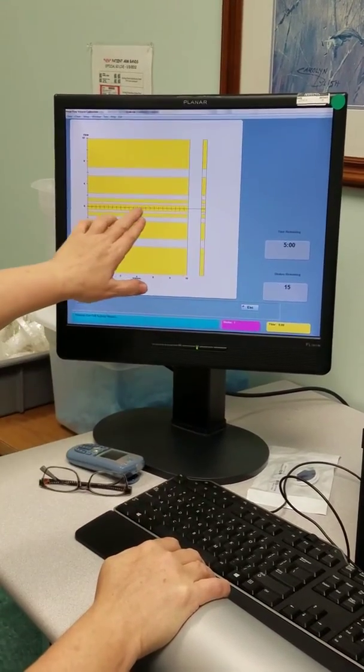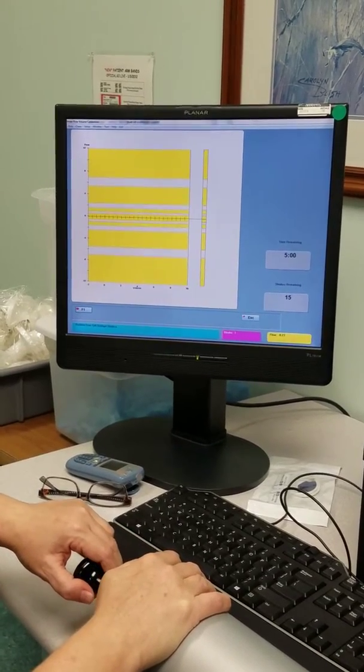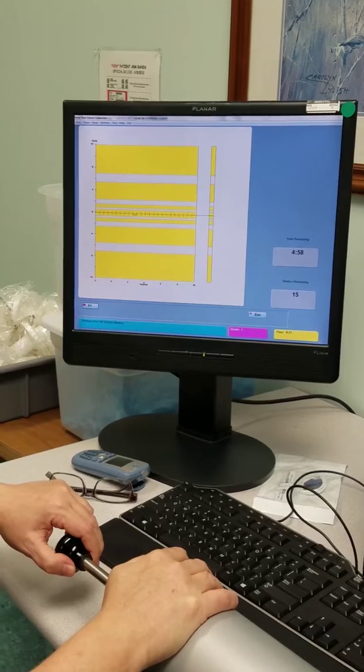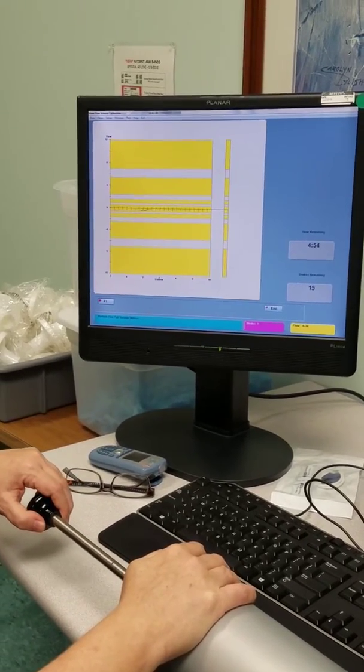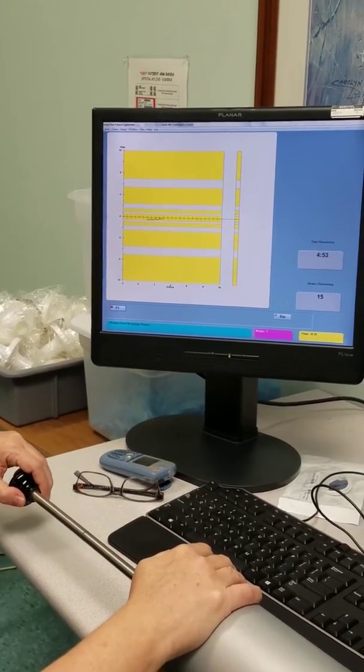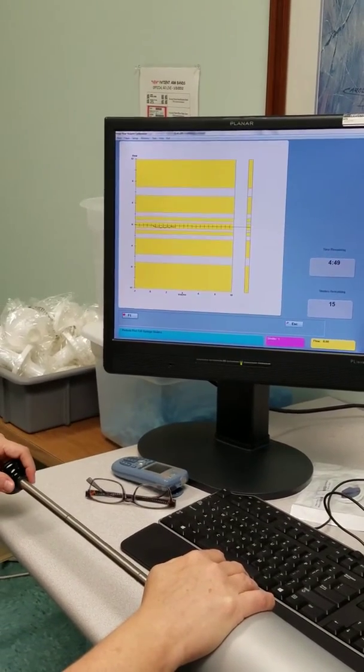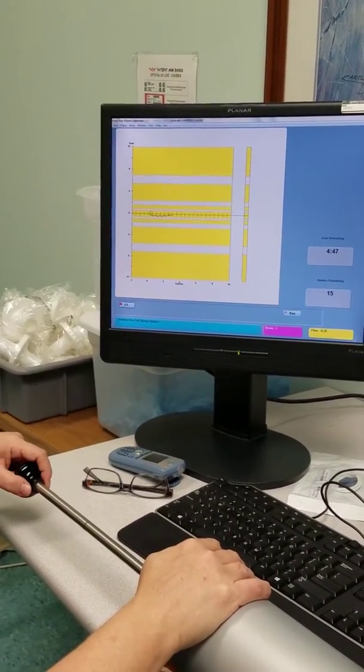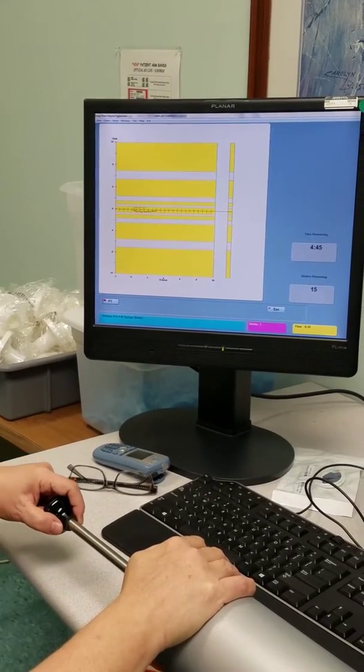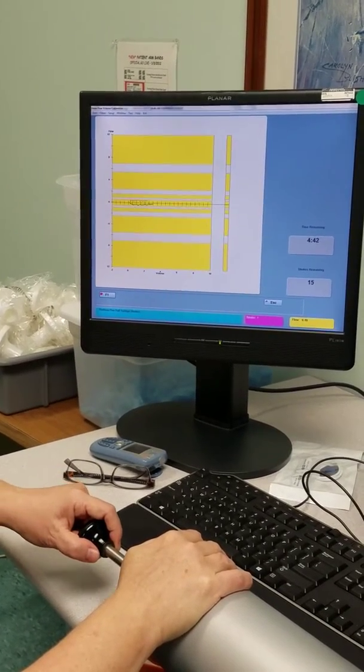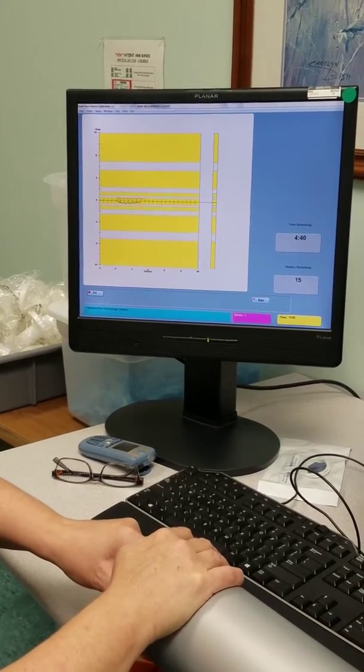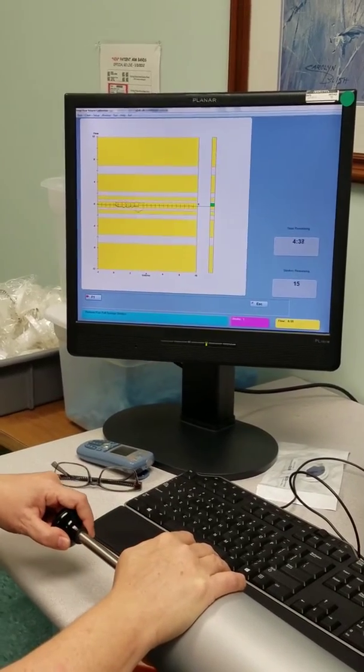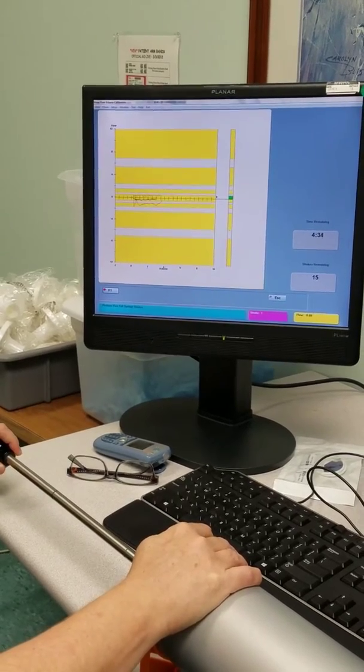Now we're going to try and keep them between the lines. First stroke it's going to stay slow and in the first little very narrow pathway. And then you want to go back the same way. Takes a lot of patience. Not always a good thing to do when you're feeling impatient. This is really the hardest line to get but just try and keep most of the line in the yellow spot.